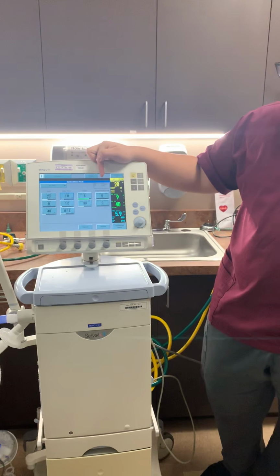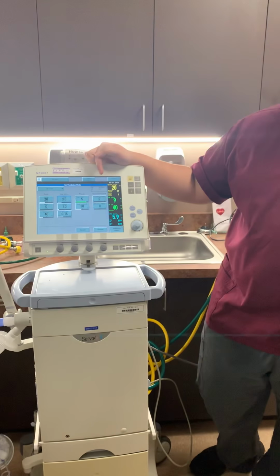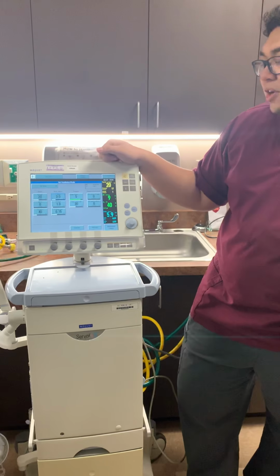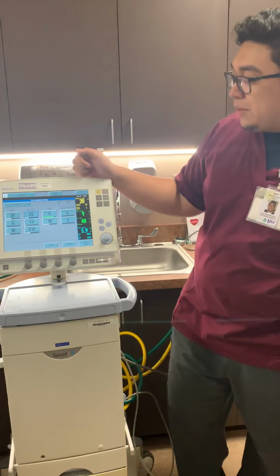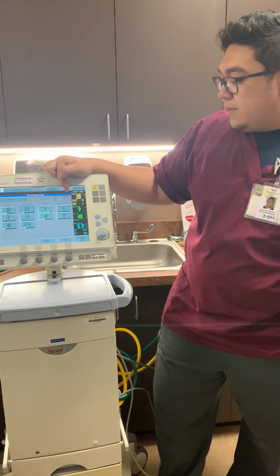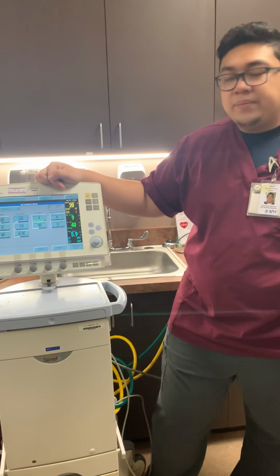So it'll calculate the breaths per minute up here in the corner on this particular vent. Not all the time you'll see that, but it's very useful. So you don't have to wait and see, all right, what's my respiratory rate going to be? Or you don't have to do math, which I love not doing math. It's my favorite pastime, not doing math. So it'll bring the respiratory rate up to 15, and it gives you your I:E here. Right now it's 3.0 to 1.